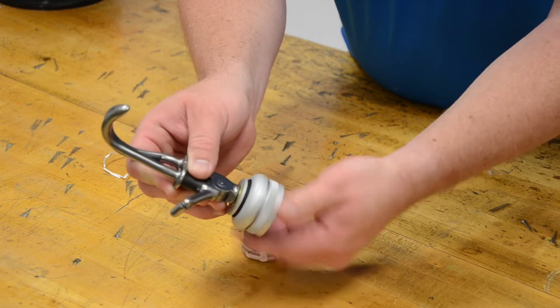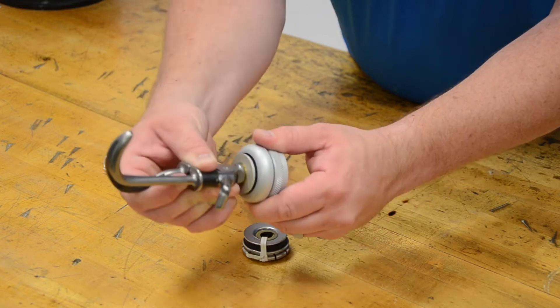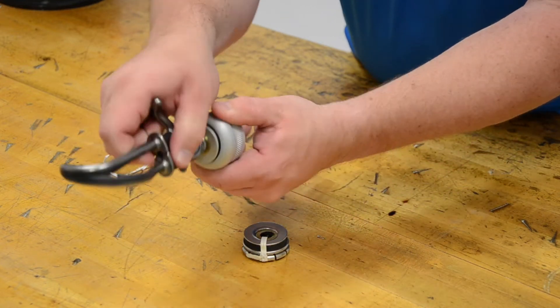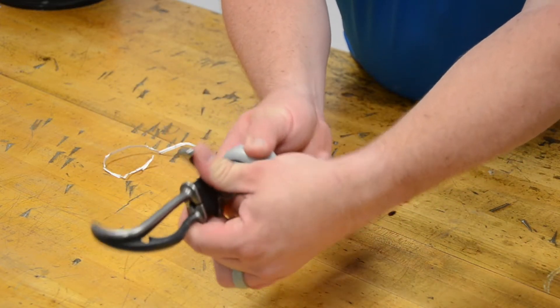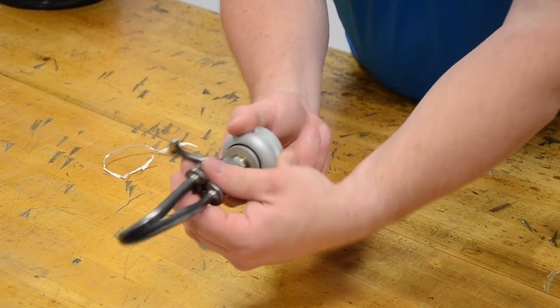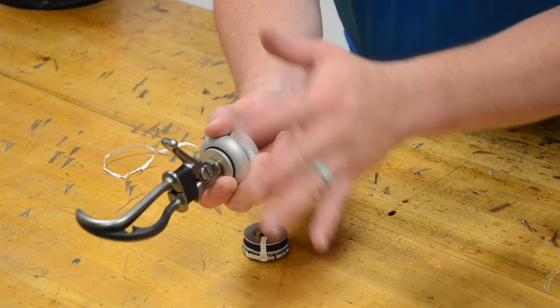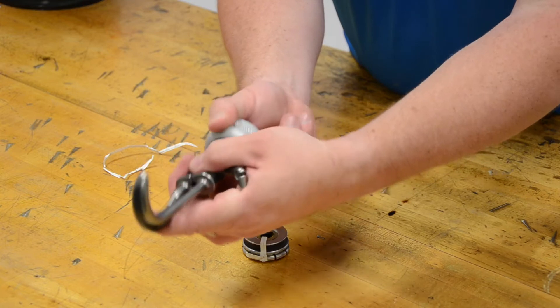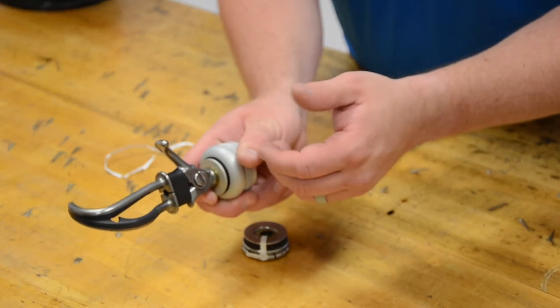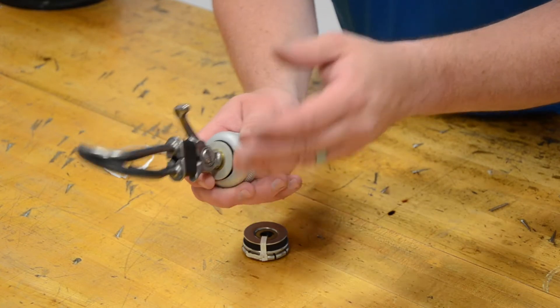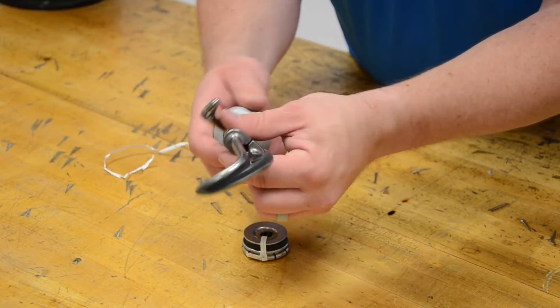That's the basic economy friction style wrist. The bad thing is if I move this from a supinated to a pronated position, there's actually less friction in that case. So for that patient, they've got to decide exactly where in space they want this to sit to accomplish the amount of friction they want. Good thing is it's fairly easy to replace most of the components.